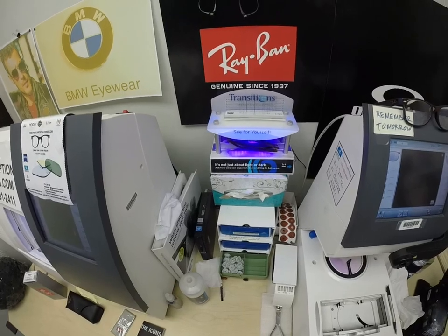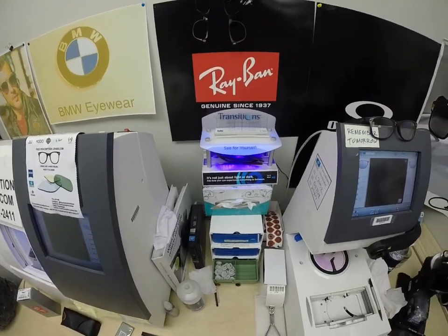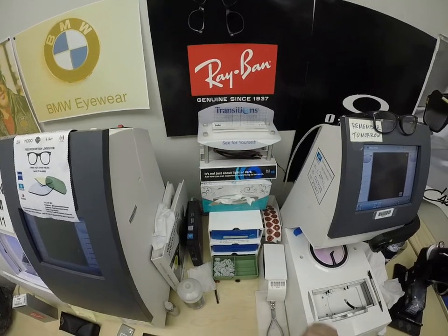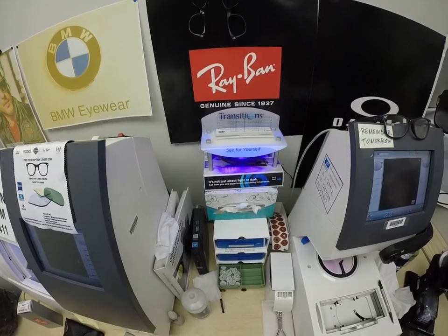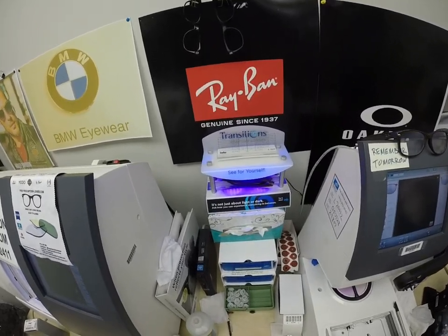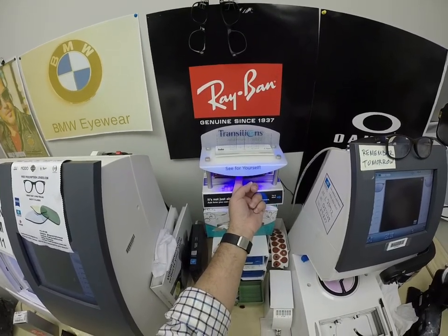This is important — everyone pay attention. All photochromic lenses will get dark on day one, and continue to darken every day for the first couple of weeks they're exposed to the sun. The only time they won't turn dark is if you're behind the windshield of a car.